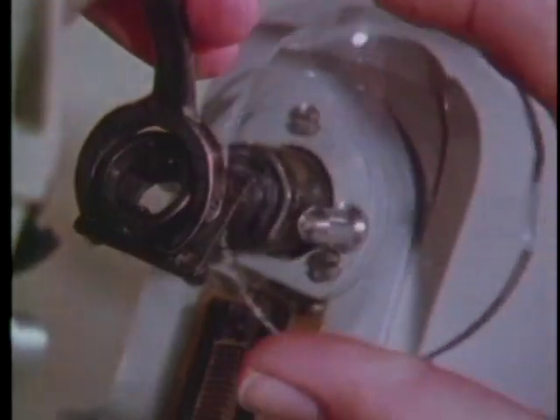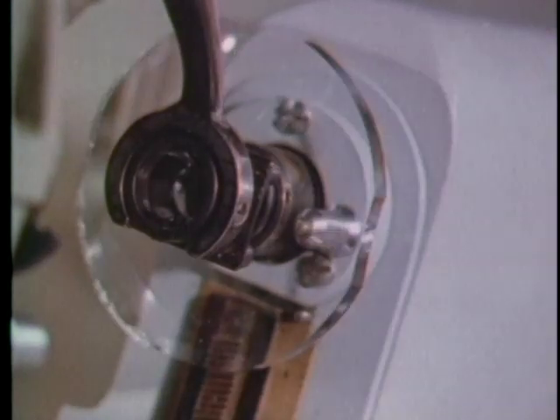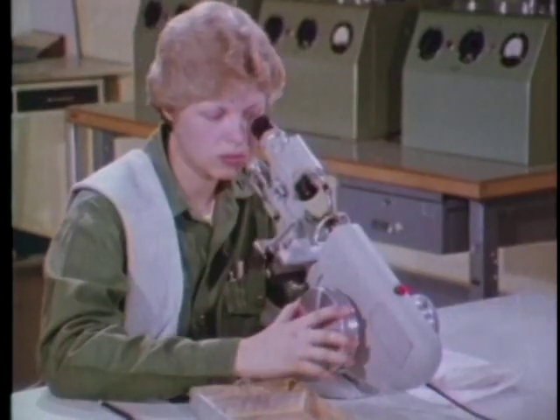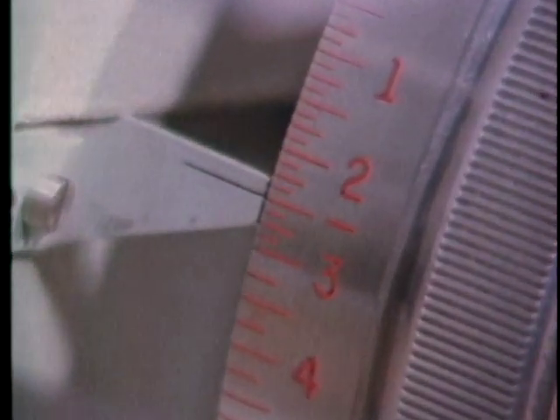Let's run through it again with another lens. Mount the lens with the convex side facing you, and remember not to let the clamp spring against the lens. Turn the power wheel until the target lines are in sharp focus. The correct answer is minus two and a half diopters.